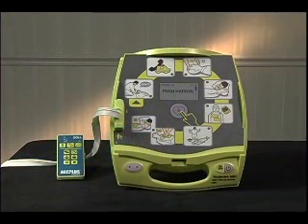Your Trainer 2 will continue following this scenario until you transmit another one to it using a remote controller. Even if you turn the unit off and change batteries, when you turn it back on, it will follow this same scenario.